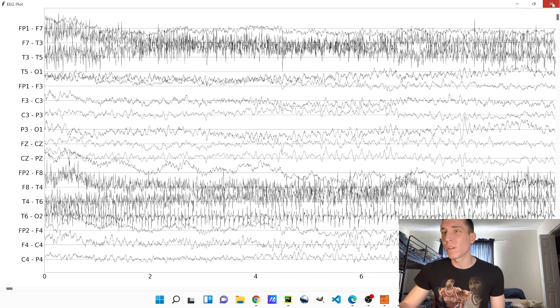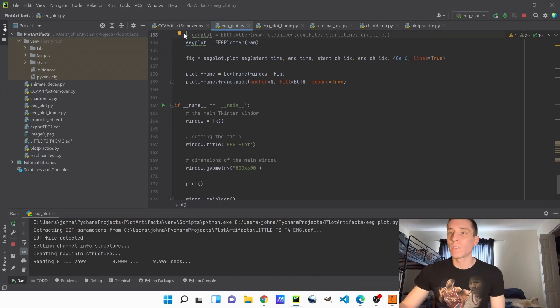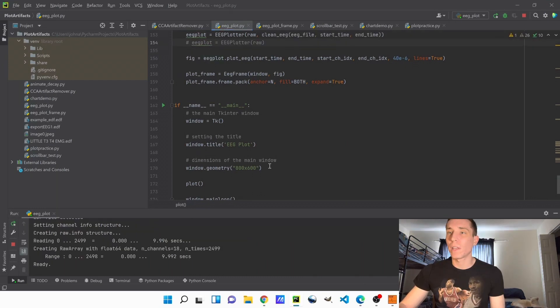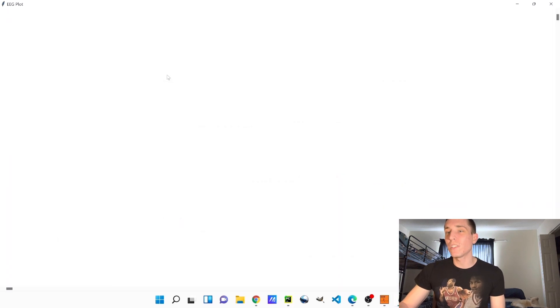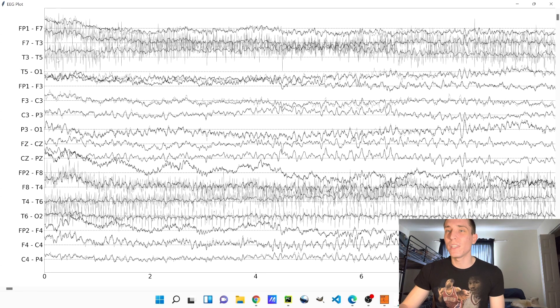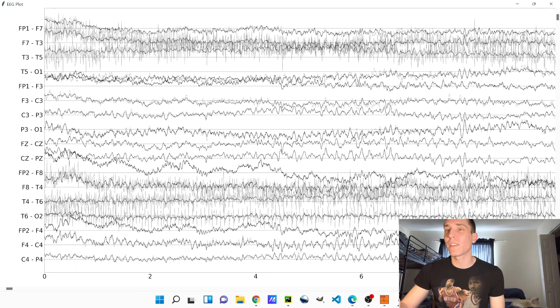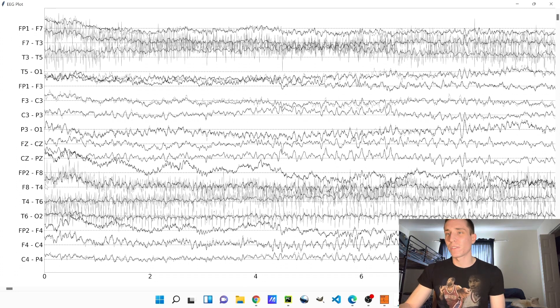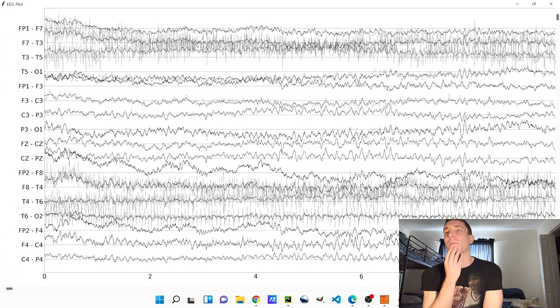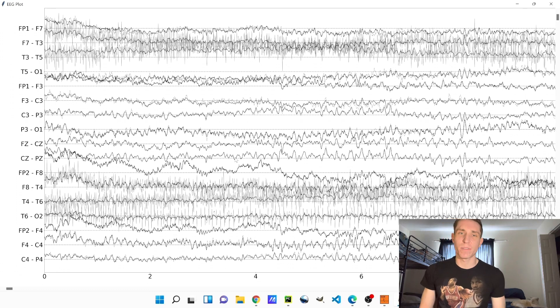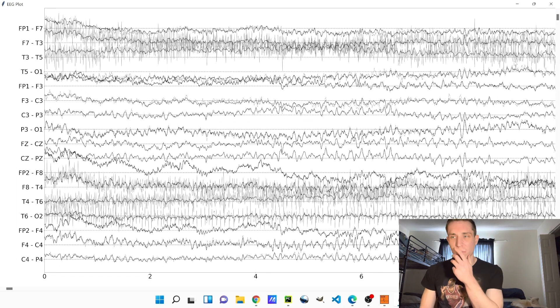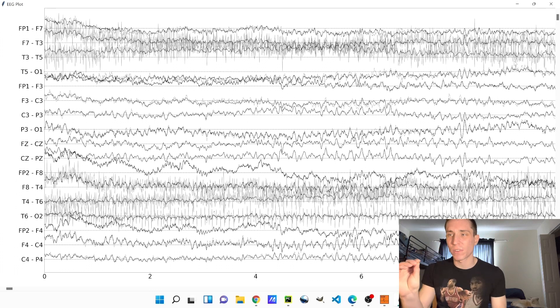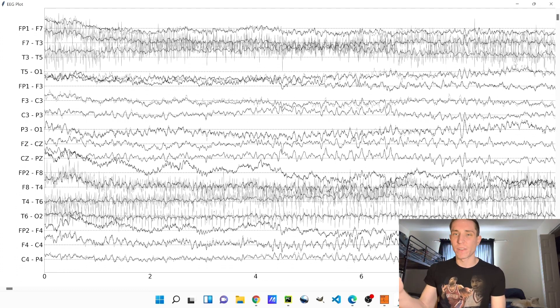Let me edit the code real quick and we will see what it looks like. Okay, so now we have our artifact reduced EEG. We have our old EEG plotted right on top of our artifact reduced EEG. So the EEG we looked at before, this gray stuff is the muscle artifact that was filtered out and now you can see the EEG is much more clear without the muscle artifact. Now I'm looking for different ways to test this new filter that I've created. So I'm looking for examples of focal seizures where they're contaminated with muscle artifact, so we can see if this filter can filter out the muscle artifact and make the epileptic activity very clear.